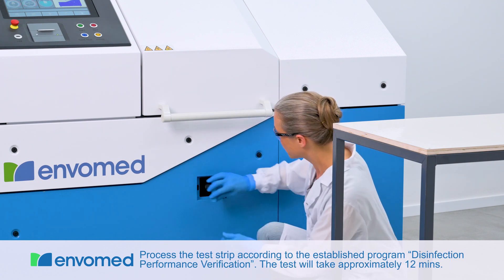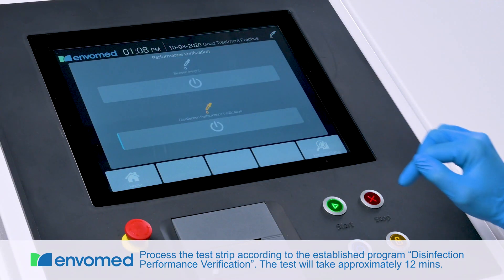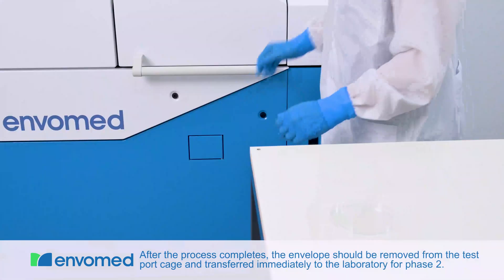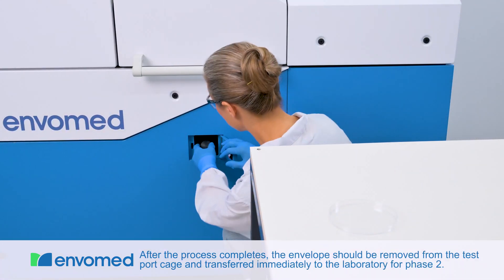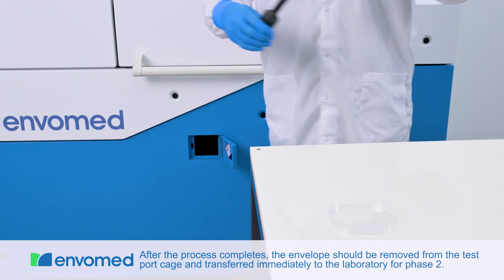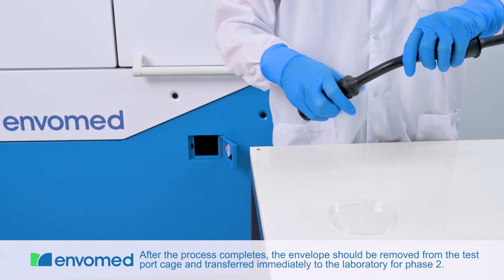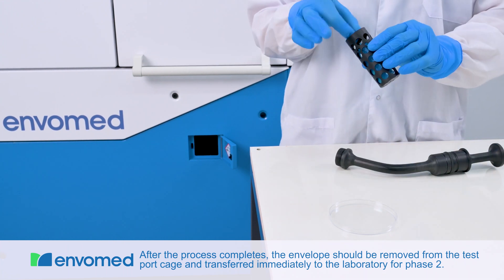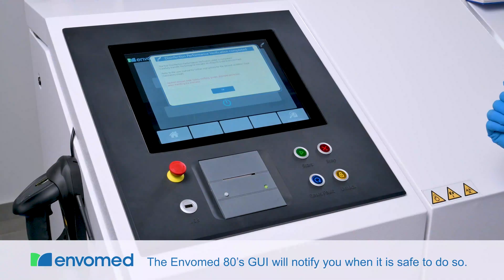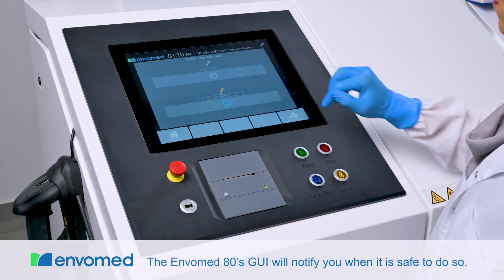Process the test strip according to the established Disinfection Performance Verification program. The test will take approximately 12 minutes. After the process completes, the envelope should be removed from the test port cage and transferred immediately to the laboratory for phase 2. The Envomed 80's GUI will notify you when it is safe to do so.